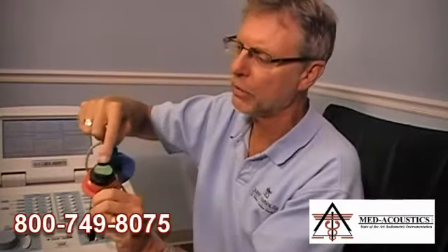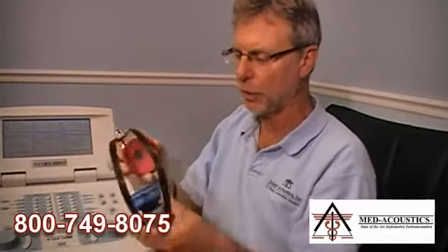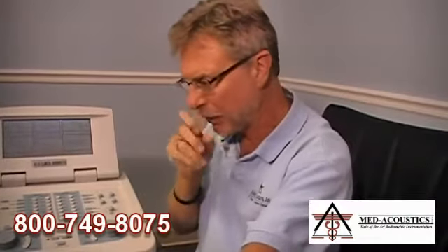If the signal disappears and comes back when I stress the cord rather than the plug, I check whether the set screws on the earphone are loose — a jeweler's screwdriver can tighten those. Usually that's not the issue though, and the cord needs to be replaced. A phone cord is a simple, inexpensive spare to keep on hand. When you find a bad cord, throw it out — don't keep it in a drawer. Get another spare as a backup, because every audiometer cord will go bad several times during the life of the audiometer.